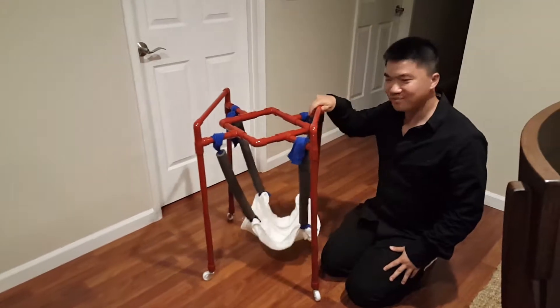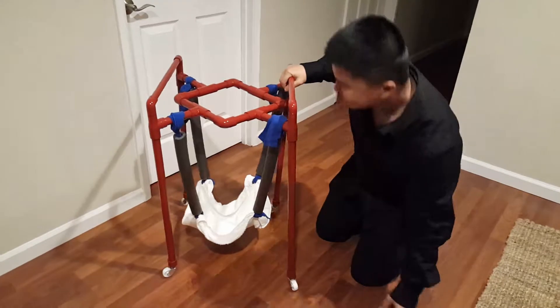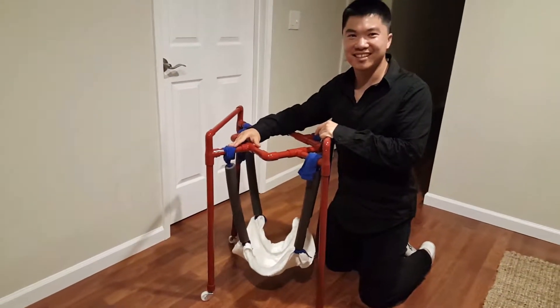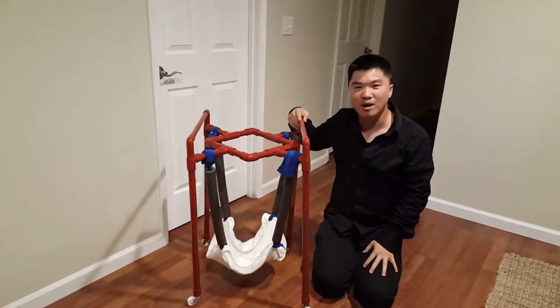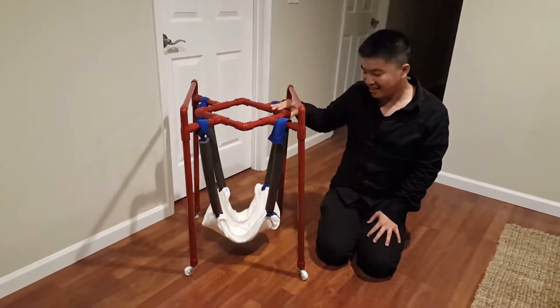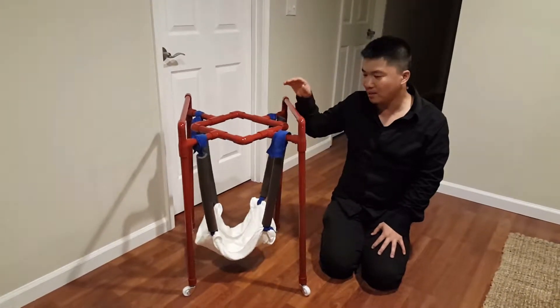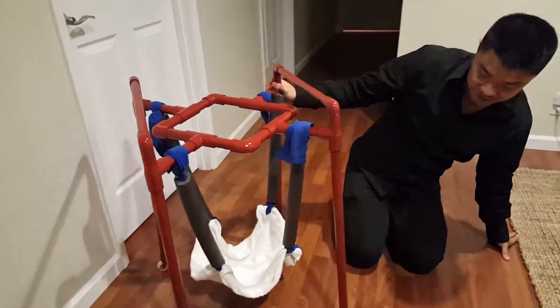I want to quickly demonstrate my design. So as you previously saw, I made this just for my niece — well, it's for my niece, but it's actually for children who have a problem with crawling. What this thing is, is a concept model for a baby crawling assist. I made my equipment out of PVC pipe and I painted each joint red. I used a ceramic glue on it.